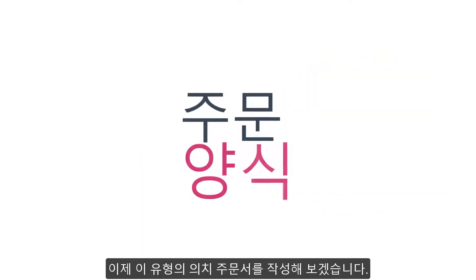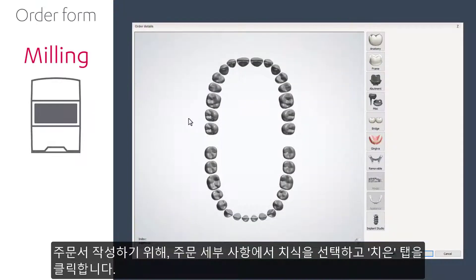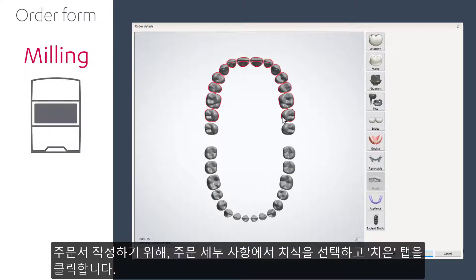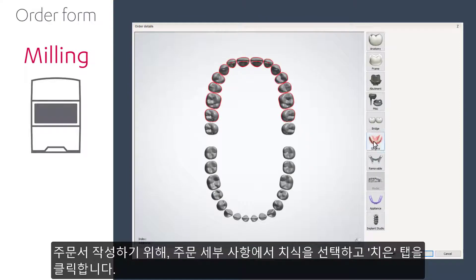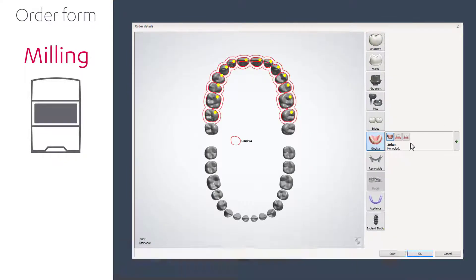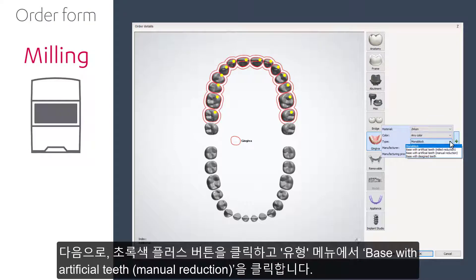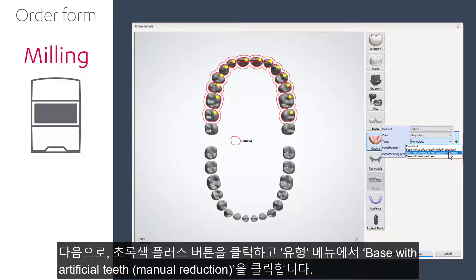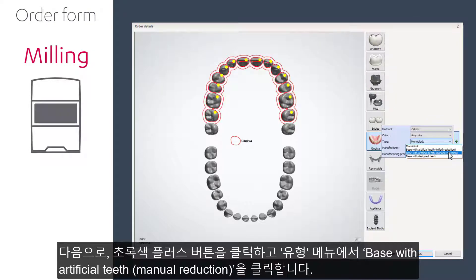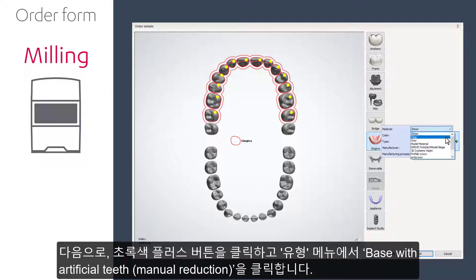How would you create an order for this type of denture? When creating an order form, choose the teeth in the order details, then select the Gingiva tab. Next, hover over the green plus, and from the type menu, choose base with artificial teeth, manual reduction.